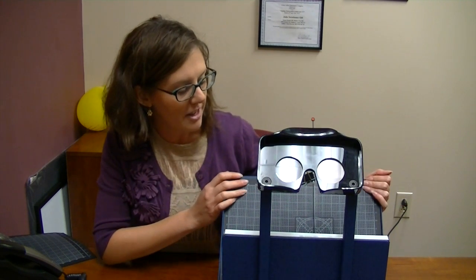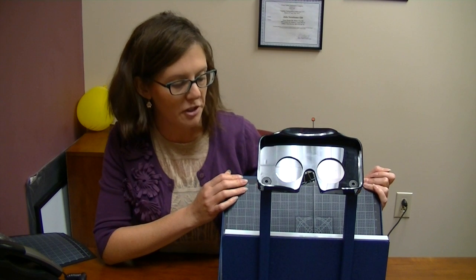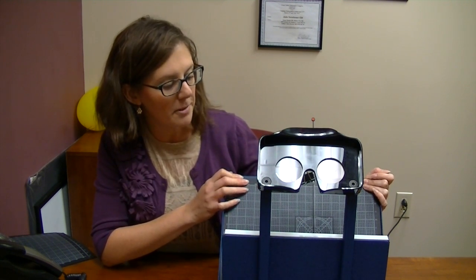Hi, I'm Dr. Julie Steinauer, and today we want to talk about an instrument and test that we utilize in our office. This particular test we use for measuring a visual attention span field, and we have talked about this in great length when we were discussing Syntonic Phototherapy.